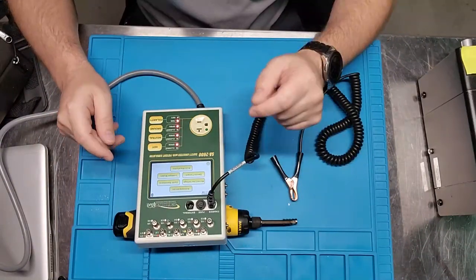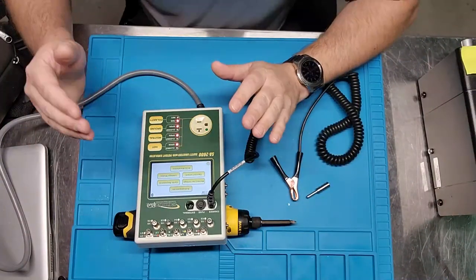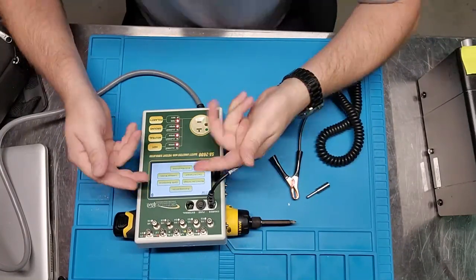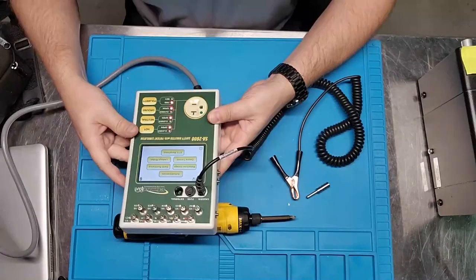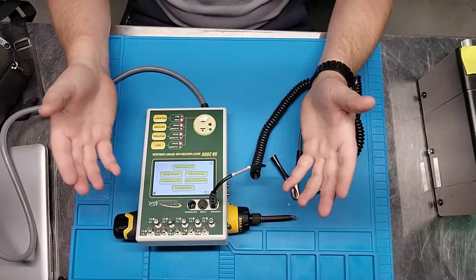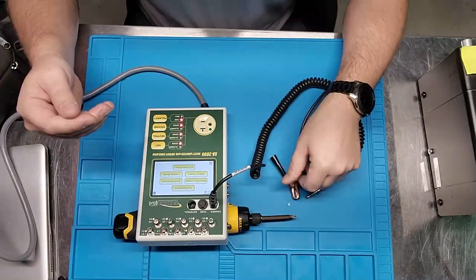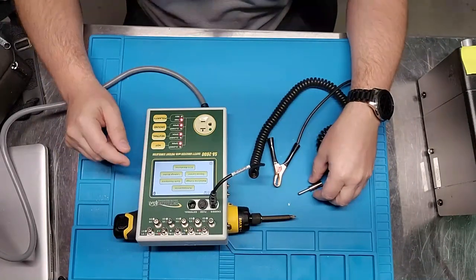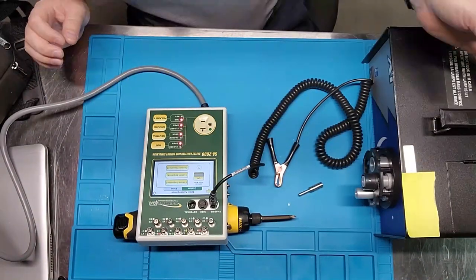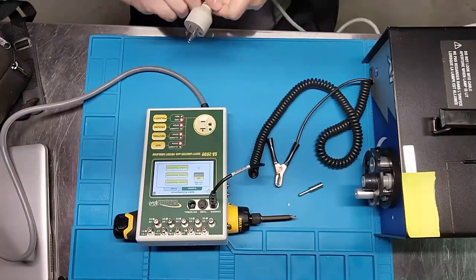Back to the main menu — that touch screen is very responsive. Date and time are displayed in the corner because the unit will date and time stamp your entries. One of the main features I haven't mentioned yet is auto sequencing, right at the top. A lot of other manufacturers offer this, but at a much higher price point. This unit has a touch screen, looks modern, and has auto sequencing built in. I have a light source device here that I'm going to hook up for an auto sequence demo.